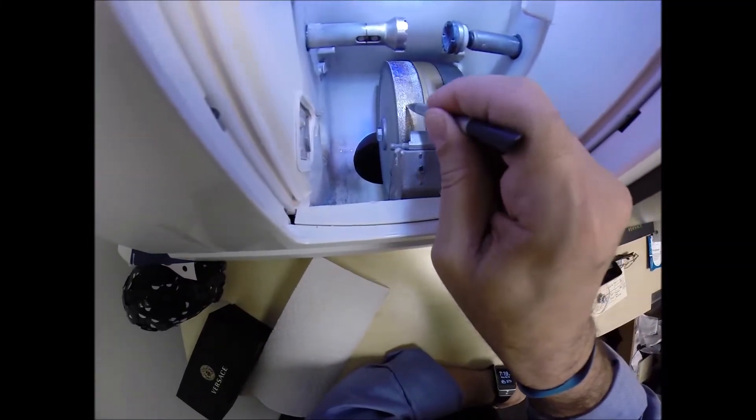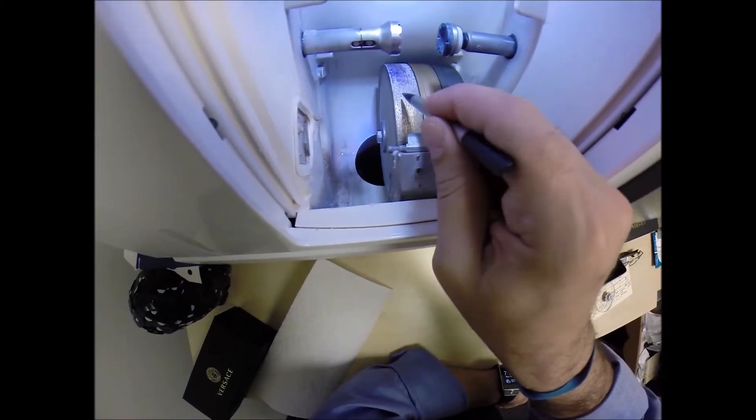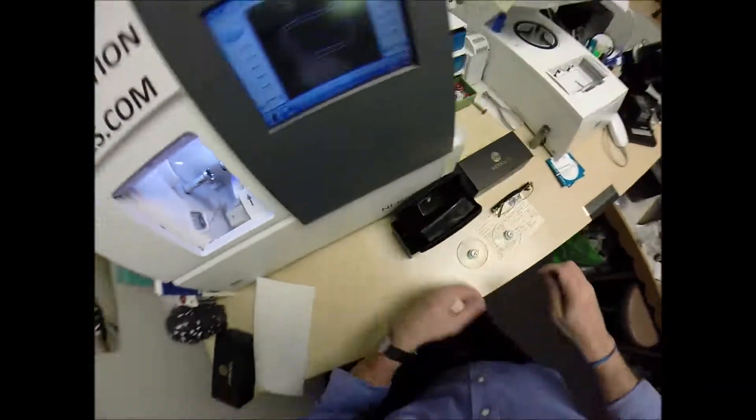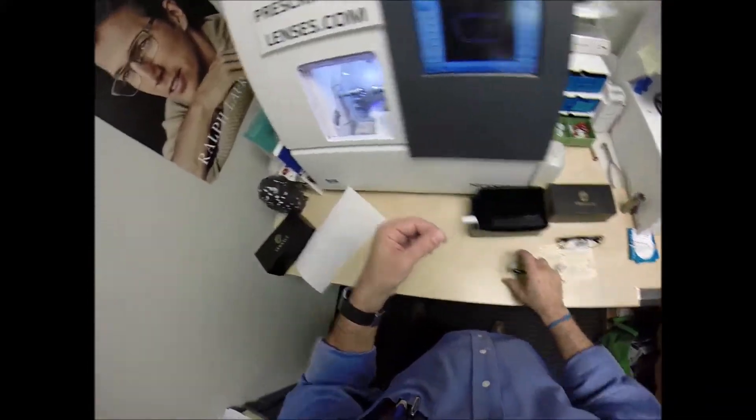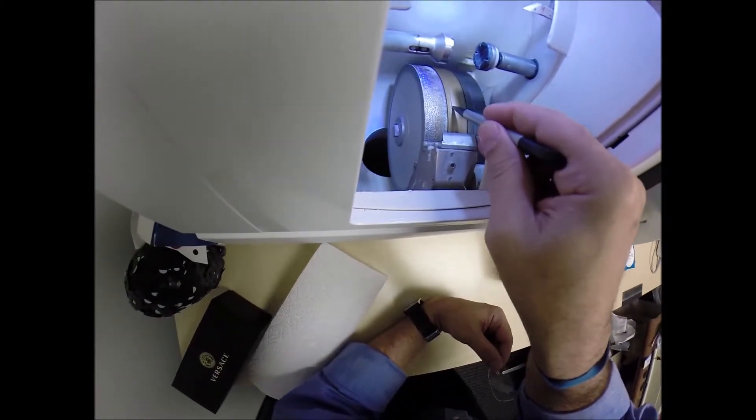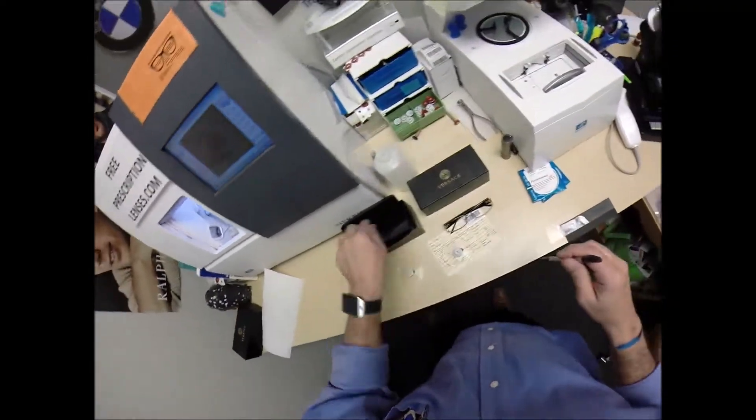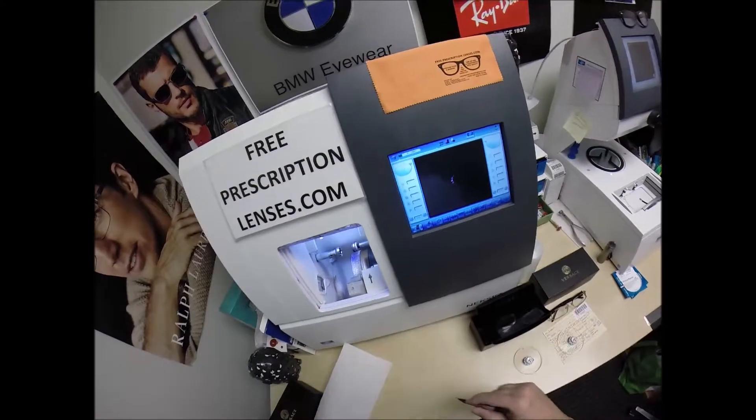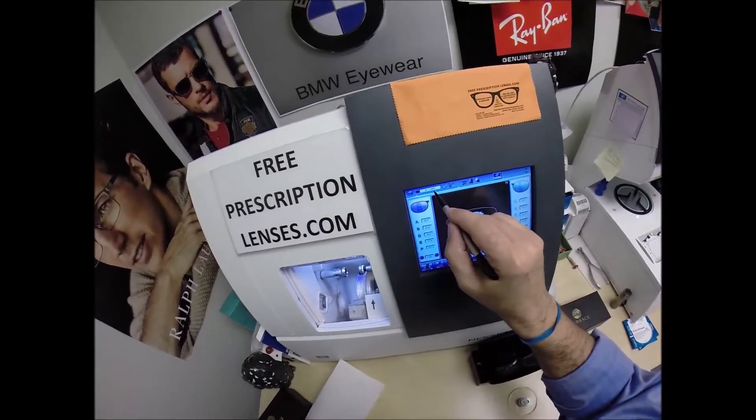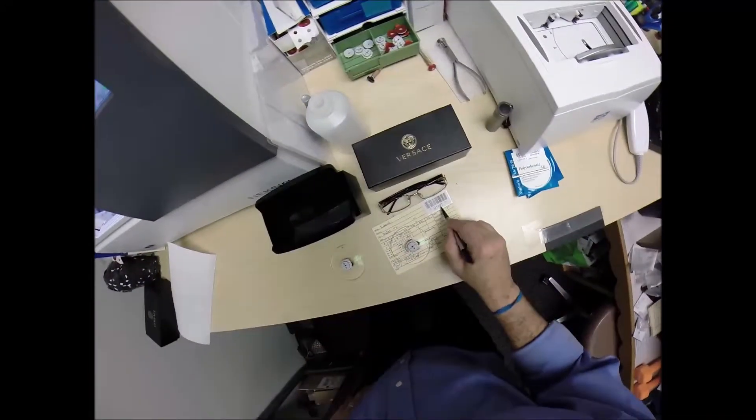I recommend everyone go out, buy their own, put it on your kitchen counter. Then you can cut your own lenses at home. The cutting wheel is this diamond crusted wheel right here. It's going to act like heavy grit sandpaper to grind away your lens material. From this size down to this size, this wheel in the center with that channel, that little valley, that's what's going to put the V shape bevel on the lens. So it stays inside the bevel of the frame.